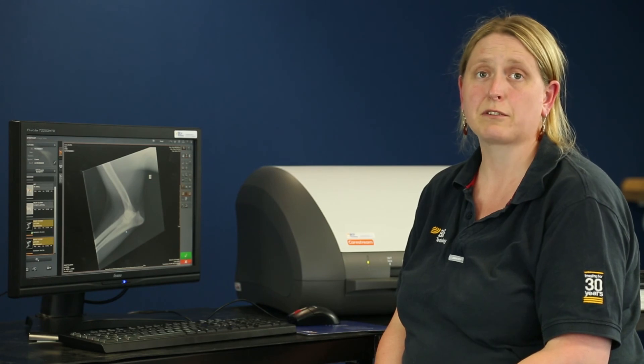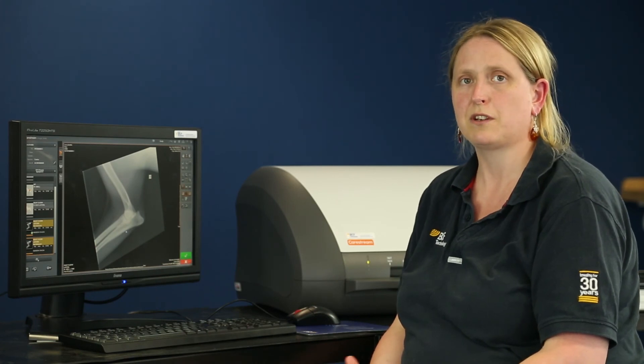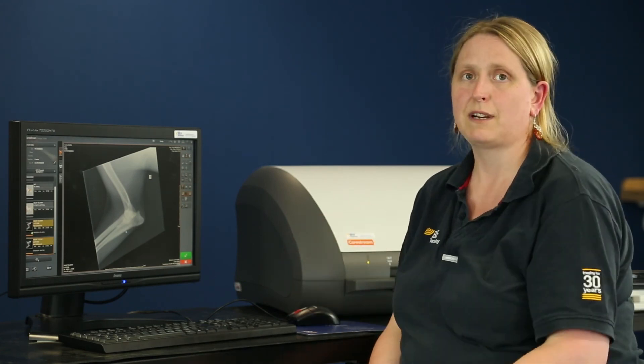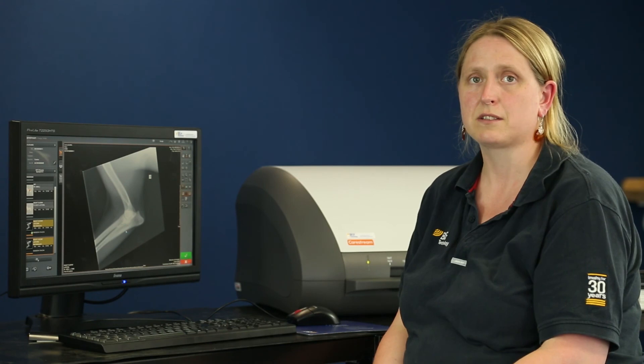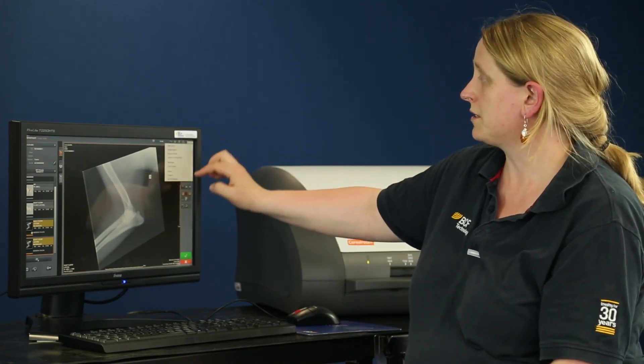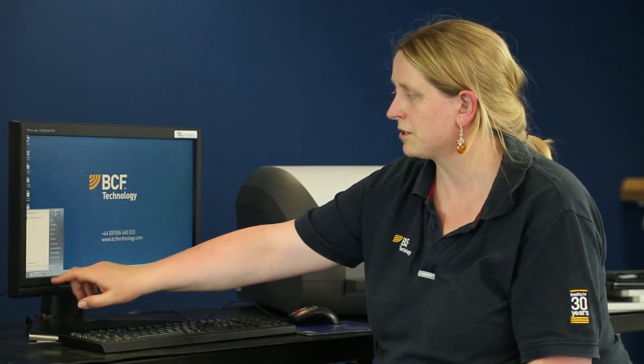Once you've finished doing your radiography you can turn your machine off. The great thing about the ImageSuite software is that if you have pictures you haven't accepted, don't worry — they'll still be there when you turn the machine back on. You can turn it off either from the radiography page or from the worklist. All you need to do is click the top right hand corner of the screen on the system menu, then do exit to desktop, and then as with any other computer just go through the start menu and shut the computer down.